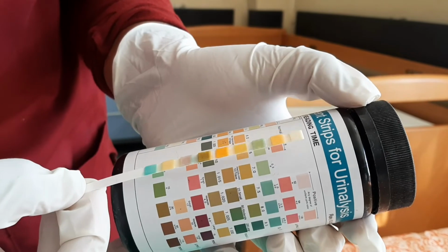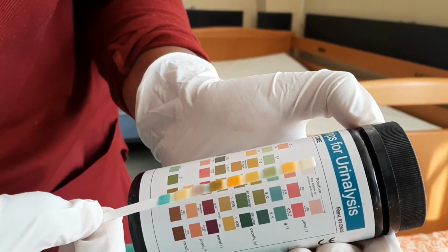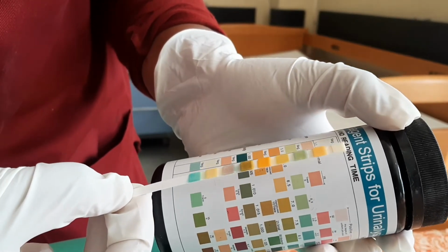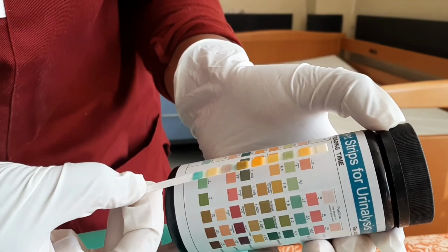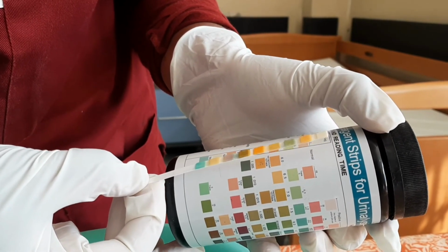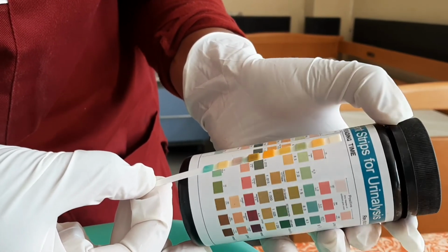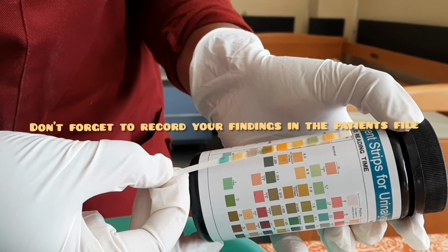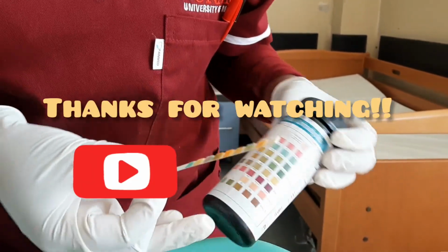Protein, 0.3 plus. pH 6.5. Blood, there's no blood in the urine, so that's negative. Specific gravity 1.020. Ketone is negative. Bilirubin is negative. Glucose is negative. So that's how you do the urine dipstick.